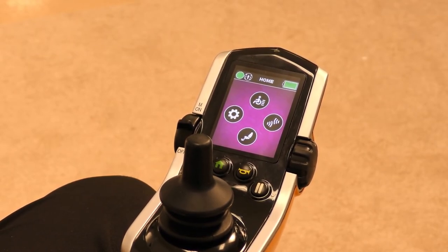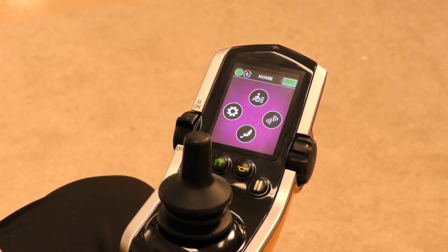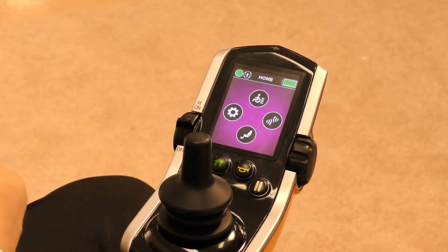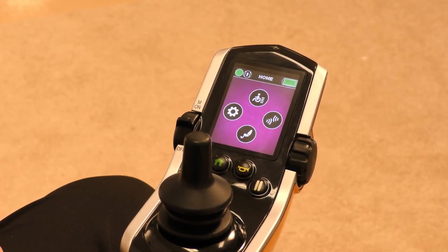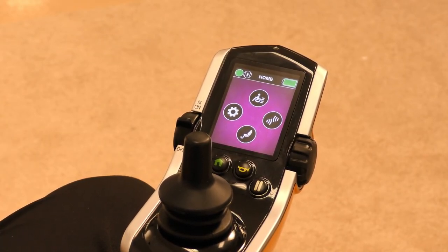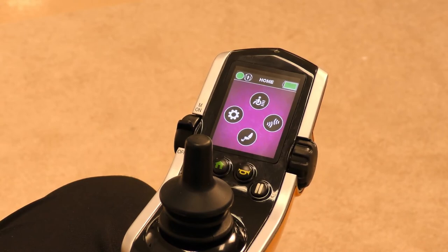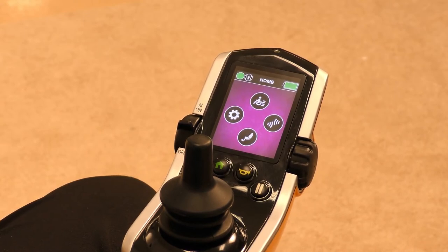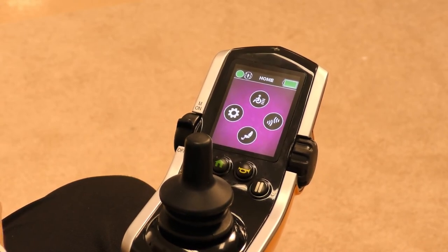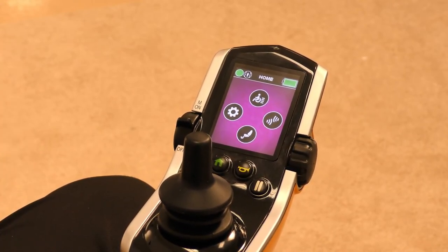The same can be done for an iDrive head array, an iDrive set up for linked driving, or any number of input options that plug into the system.